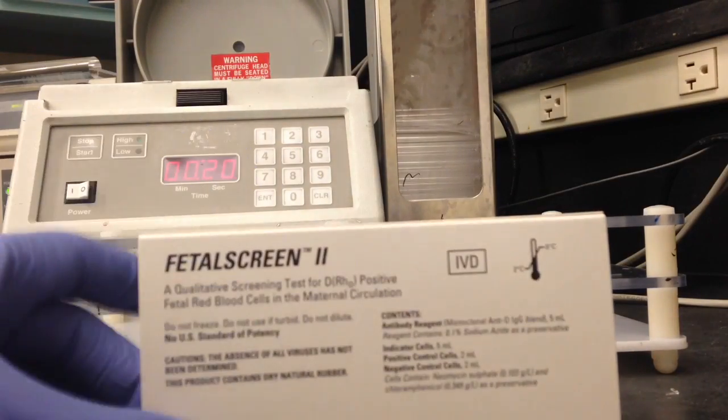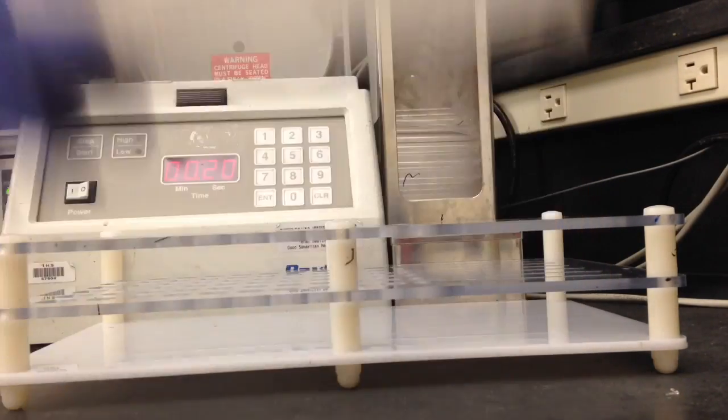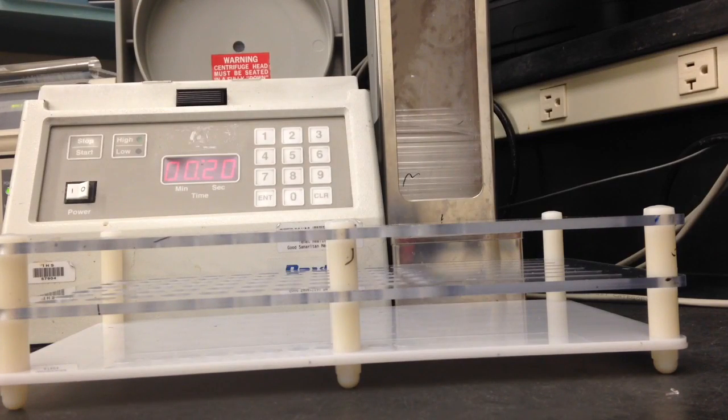In this video I'm going to show you how to perform a fetal maternal bleed screen using the Ortho Fetal Screen 2 kit.